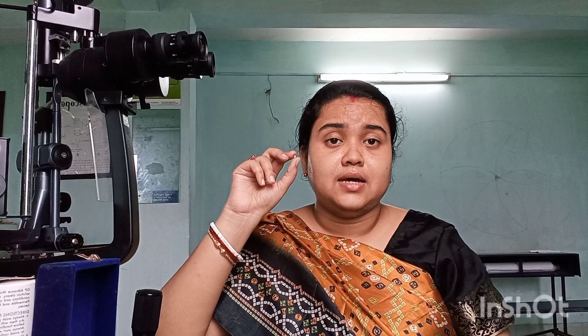The RGP lens sits over the cornea with a gap between the lens and the corneal surface, which is filled by the tear film. This tear film corrects astigmatism. In keratoconus, where the cornea is very irregular, the tear film fills the space between the lens and the irregular cornea — this is called the tear lens system. The tear lens system acts as a convex or concave lens and corrects the astigmatism.